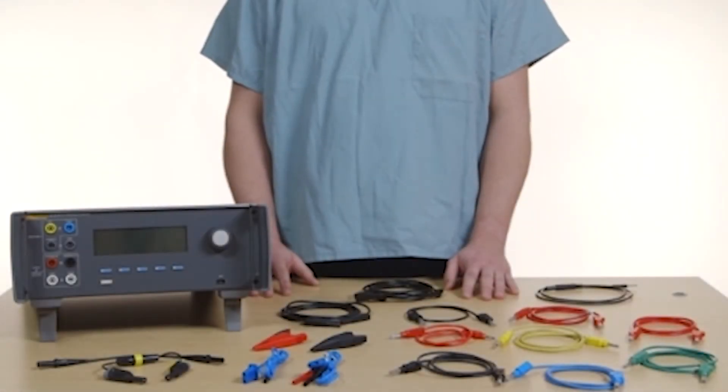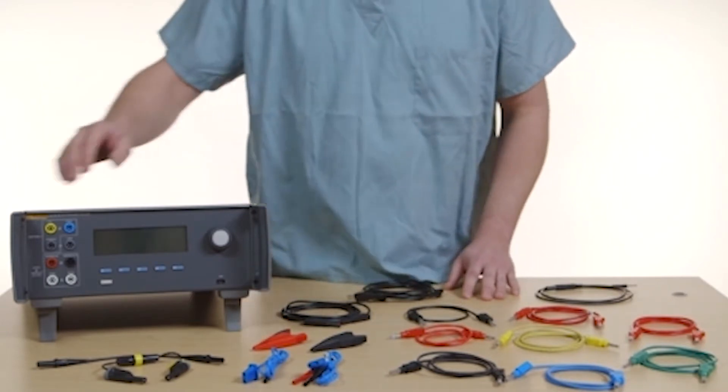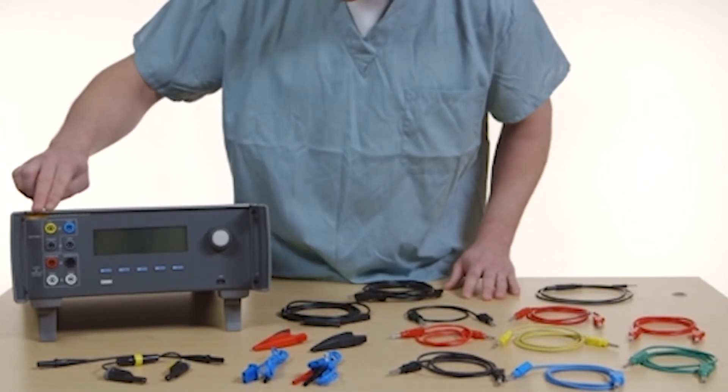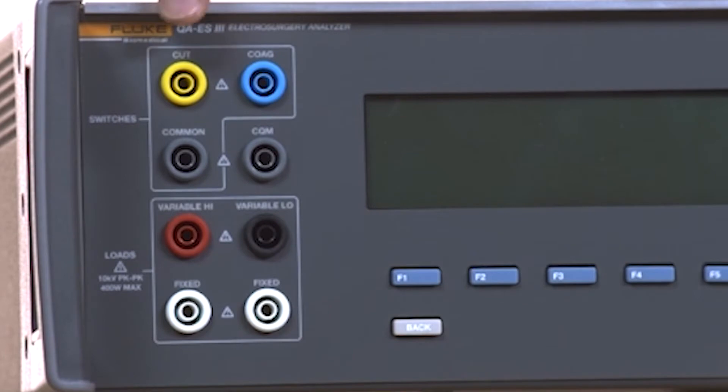Let's see how the QAES3 works. These are the foot switch connections for energizing the electrosurgical unit you're testing. They're labeled cut, coag, and common.